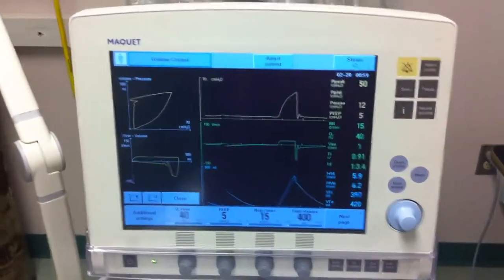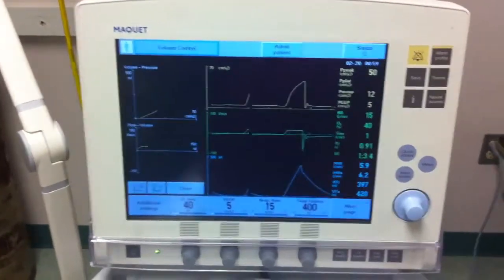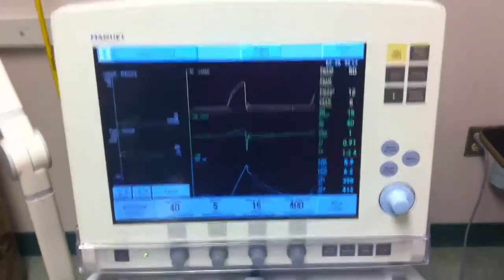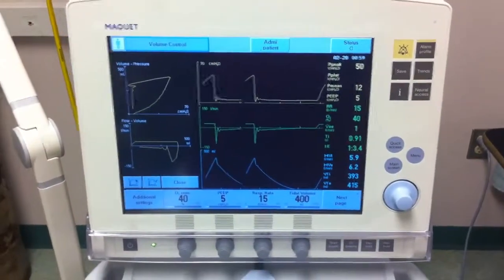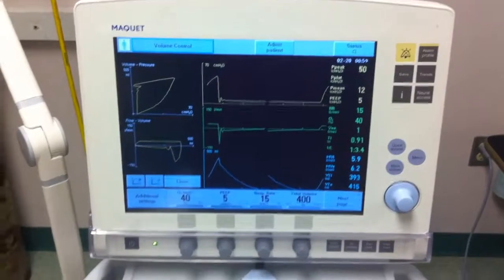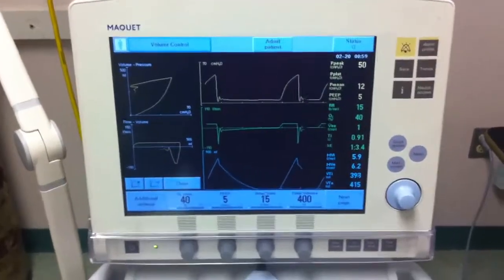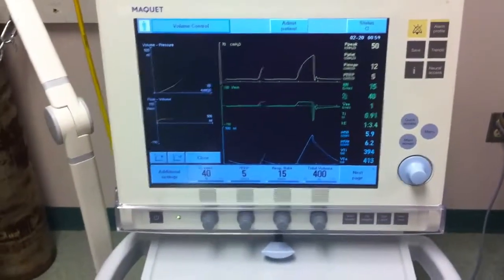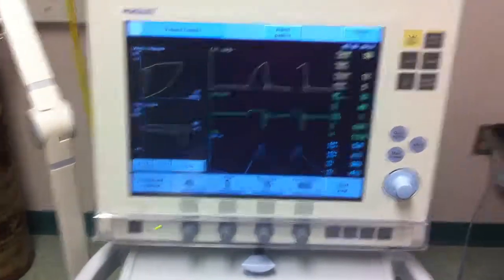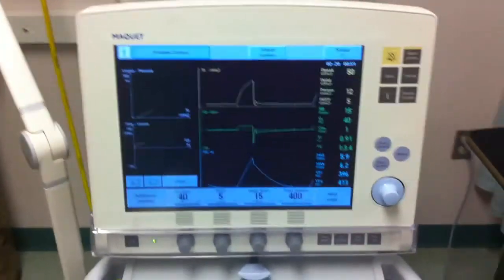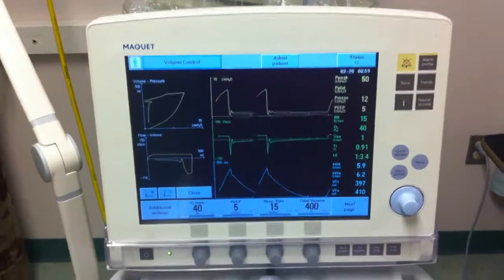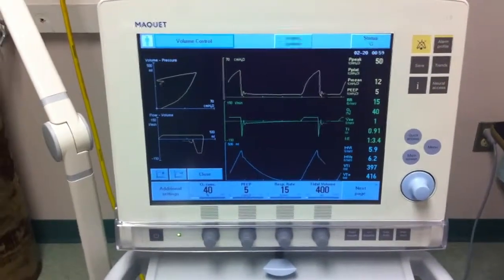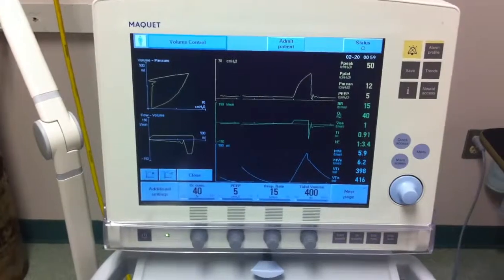Take a minute to look at these waveforms and discuss them. Looking at the patient's vital signs, you notice that the blood pressure is low and the patient is tachycardic. You go ahead and decide to do some further assessment at this time.